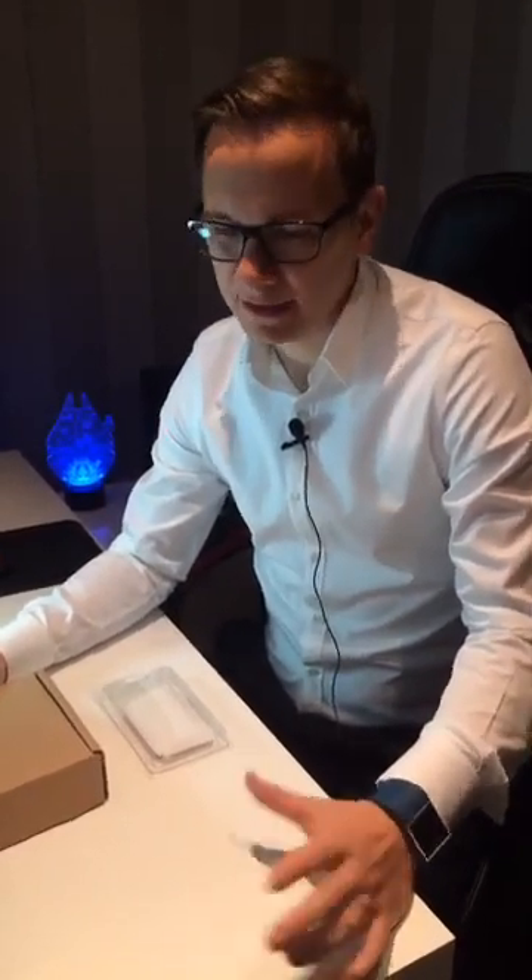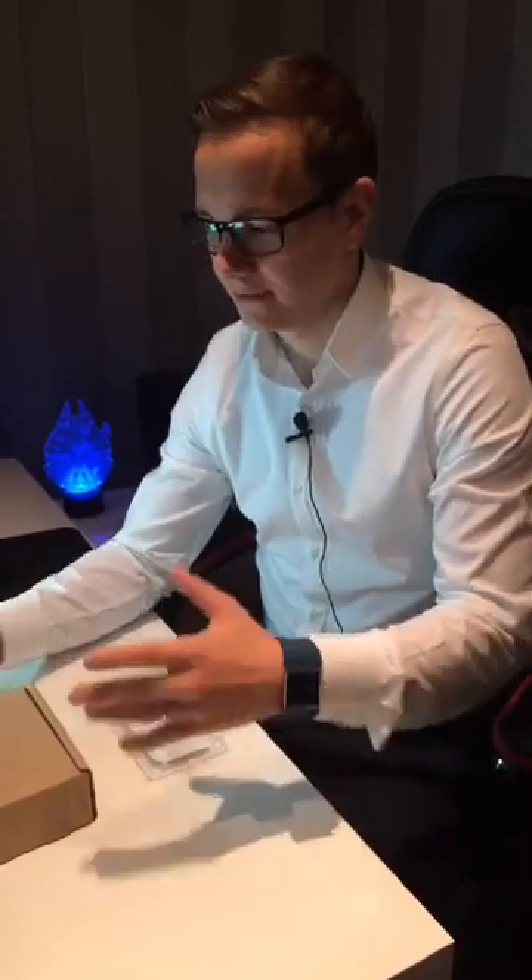Today it's quite an exciting video for me too because we unpack a brand new medical device and I'm talking about the Vive, W-I-W-E. In the case of this medical device, I was a consultant in the very first initial phase of the device. I gave suggestions to the company about how to use their initial idea when developing the product, but now I'm quite excited to see how it works out in action and we will unpack the Vive and try it live with my smartphone as well.